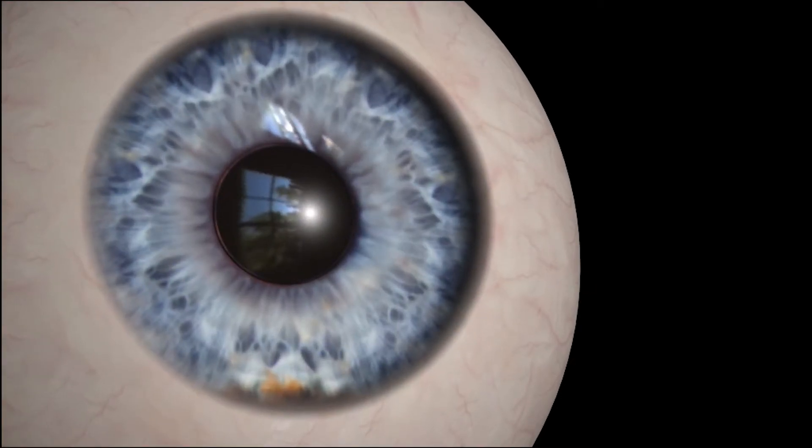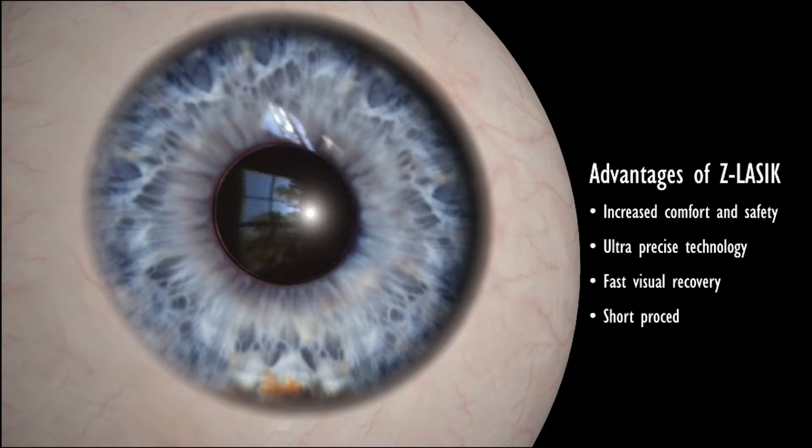Z LASIK is the most advanced LASIK procedure. With innovative features to increase your comfort and safety, its ultra-precise technology ensures the best and fastest visual recovery.